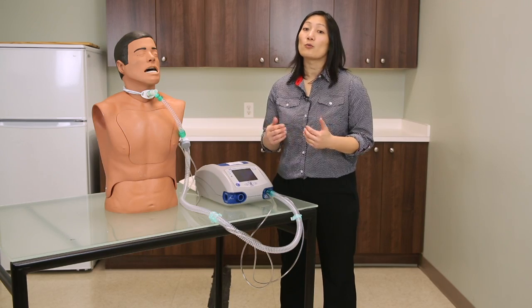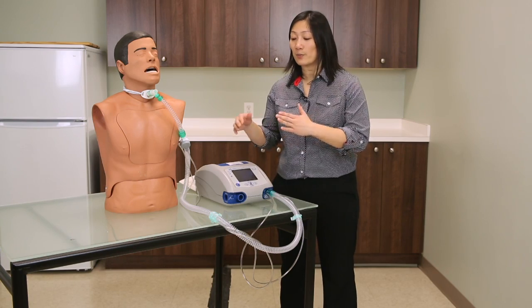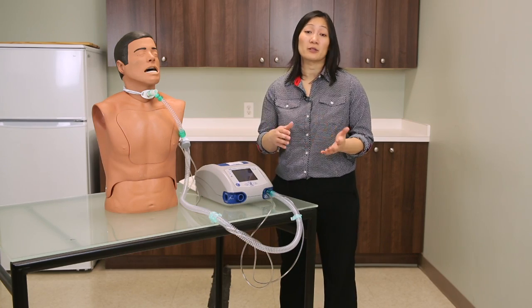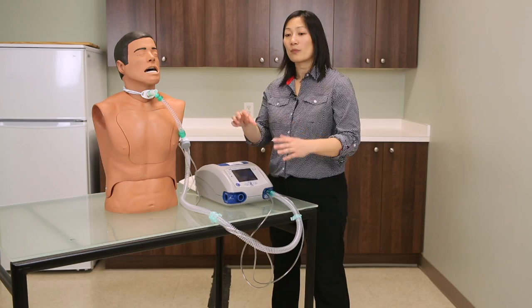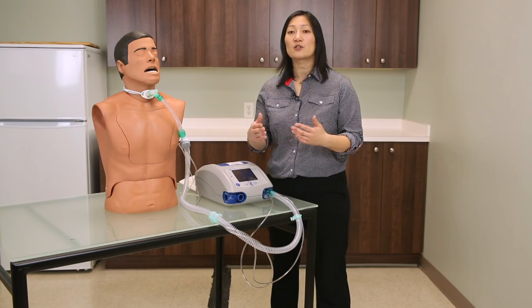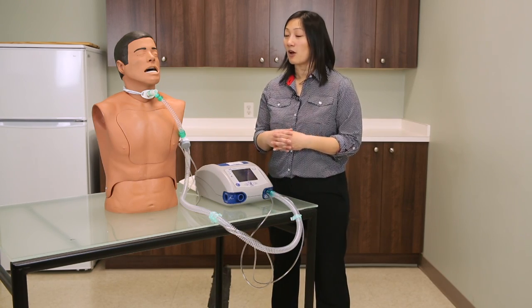When setting your low pressure alarm, you want to set it as close to but above the back pressure measured in the circuit. The closer you can set it to your normal operating pressures, the safer it is for the client. However, if your client's normal operating pressures fluctuate a lot, you may get nuisance alarms. Set the low pressure alarm above the back pressure in the circuit, but close enough to normal operating pressures that you're not getting nuisance alarms.